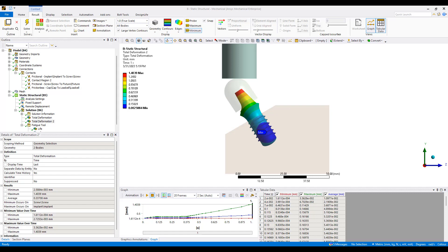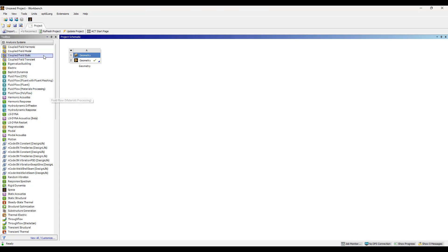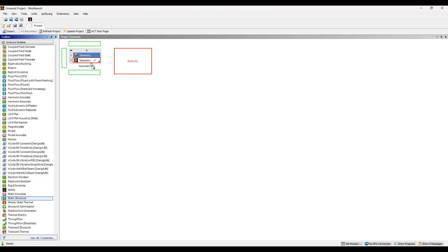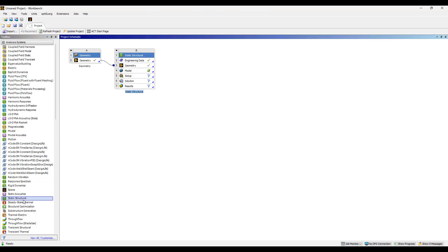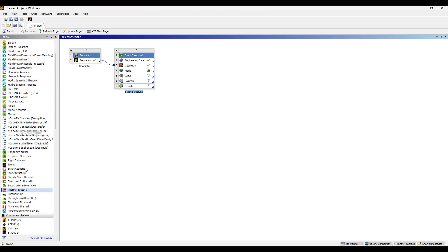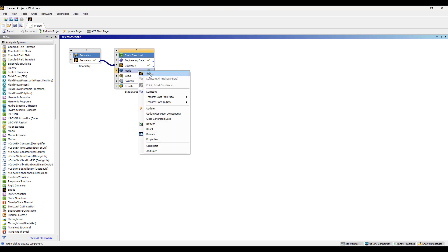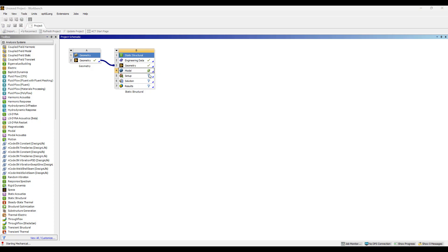I'm going to start from the beginning by opening up a clean ANSYS workbench environment and loading in the geometry. This is an ANSYS workbench environment that allows us to simulate a wide range of analysis from structural mechanics to fluid dynamics, electromagnetics, explicit drop simulation, thermal. Almost everything ANSYS can do is available in this tool and we're going to start with just a basic static structural analysis.